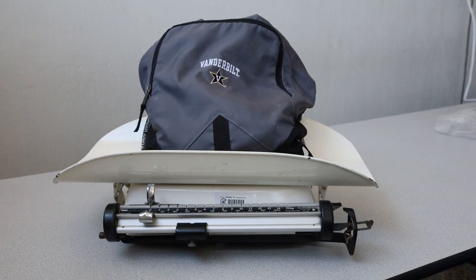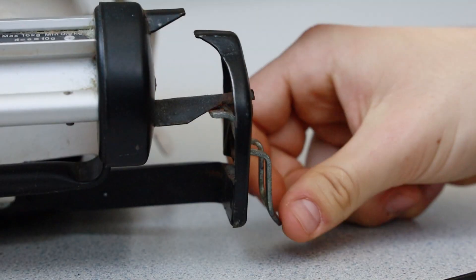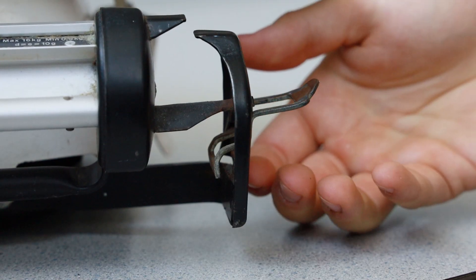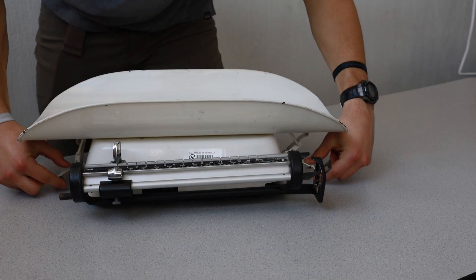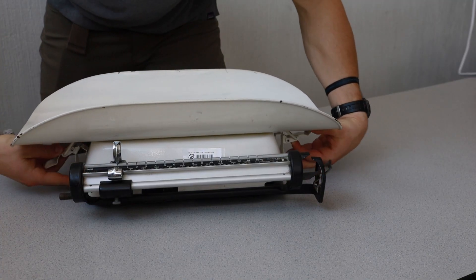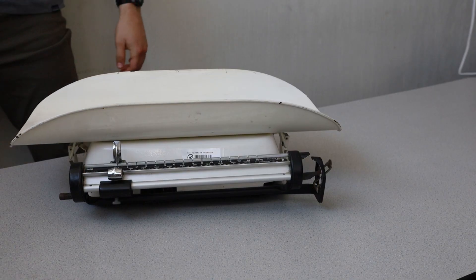We will now discuss the problems that may arise when using the infant scale. If you have placed the item to be weighed on the scale and the beam does not move from its initial position, there may be a problem with the way that the scale is set up. Make sure that the transport locks have been released and are not blocking the beam from moving up and down. Additionally, make sure that the basket has been properly secured using the side latches and make sure that there are no obstructions around the scale that may be preventing movement of the beam.